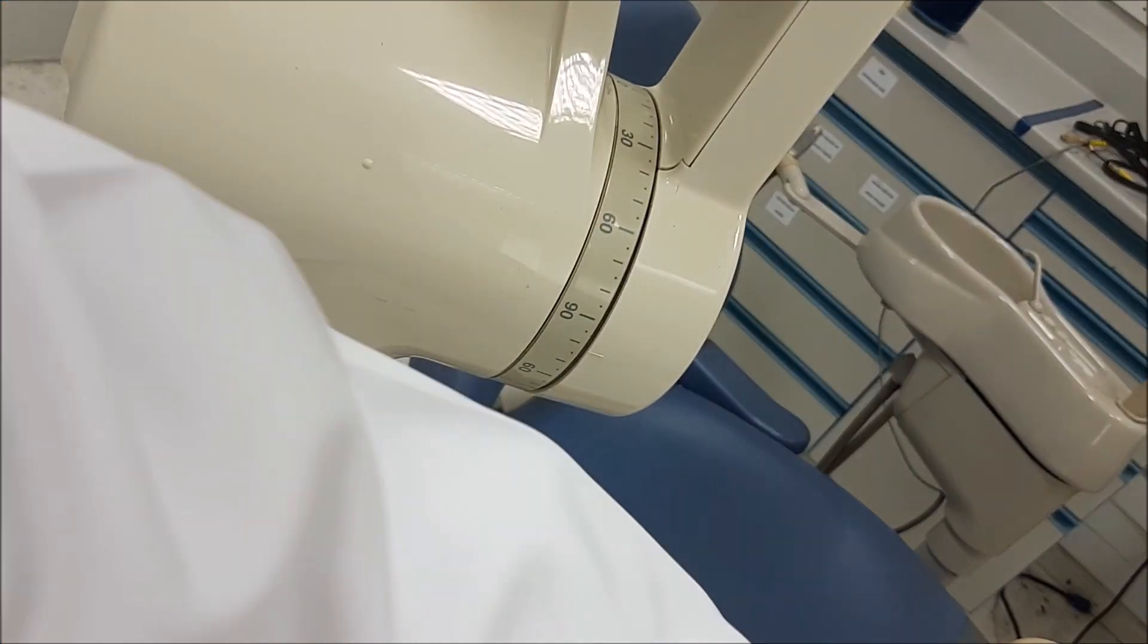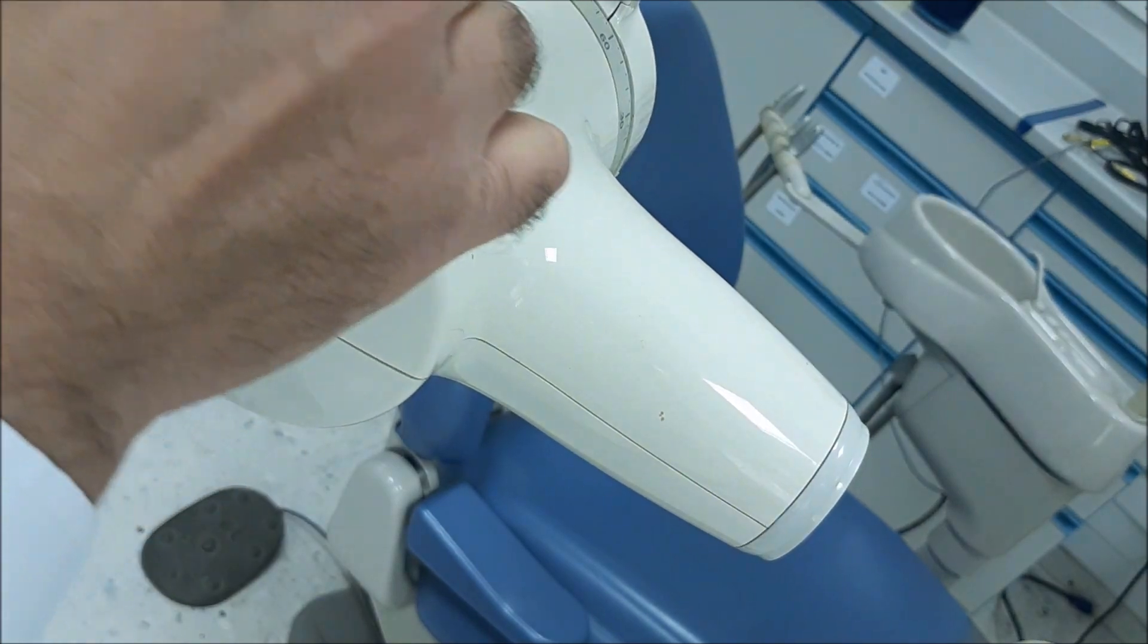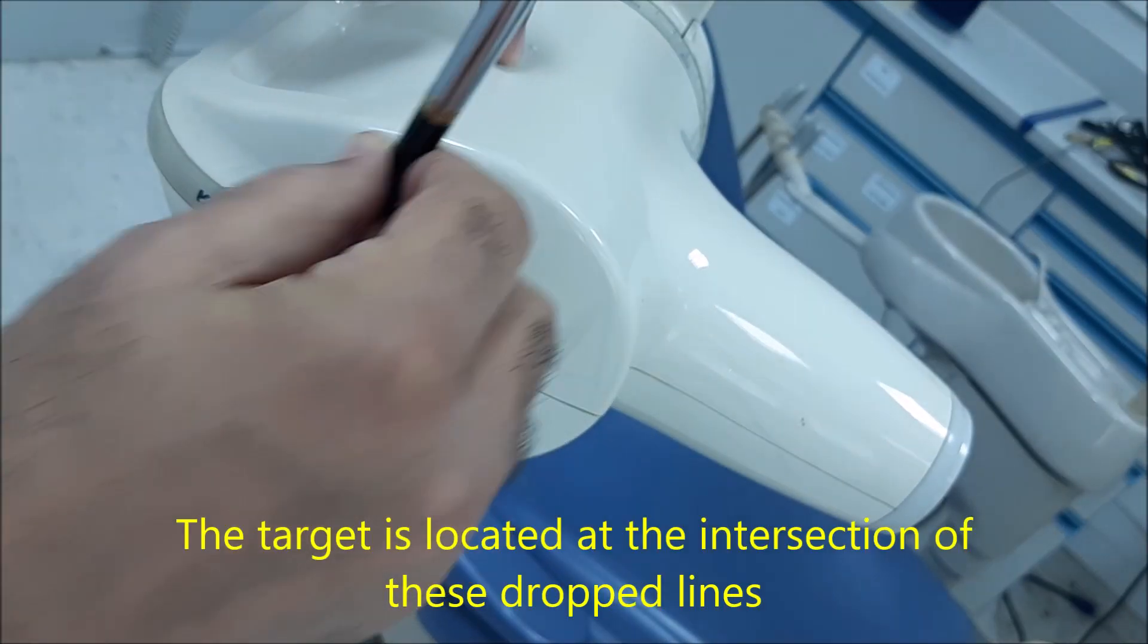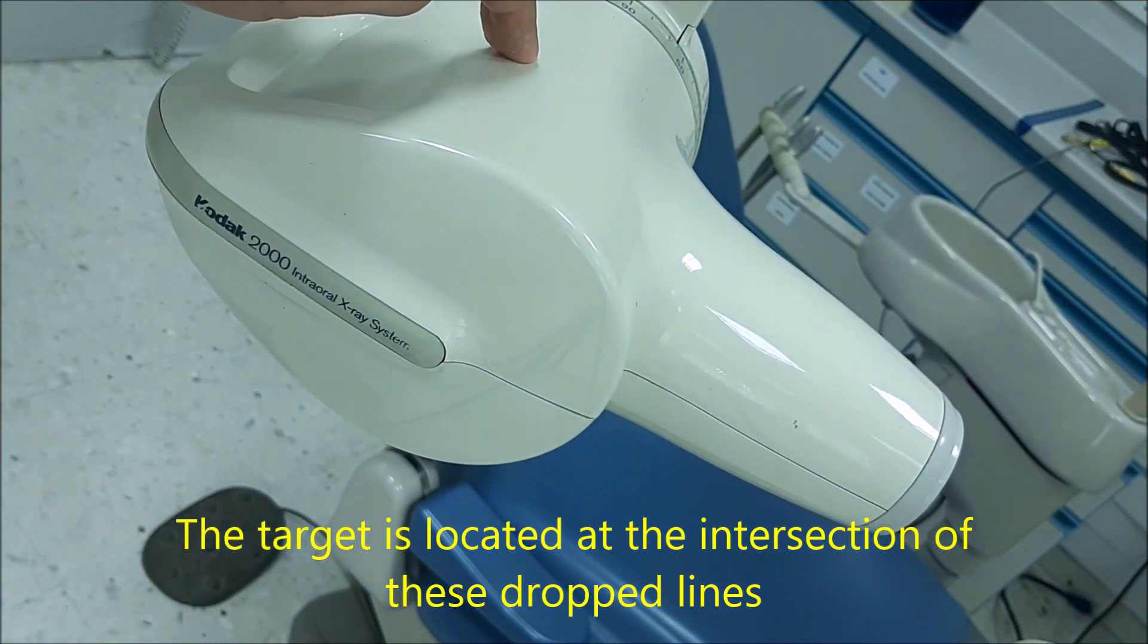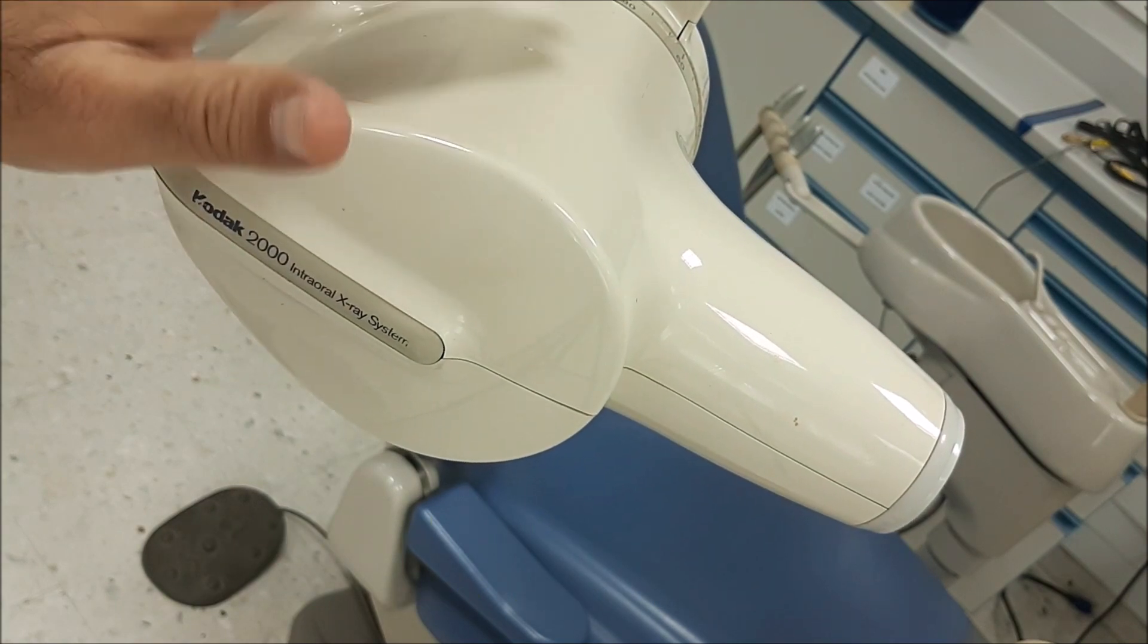So if you drop a line from this point over here, you will find the target and an area in between. In this area, all this head is filled up with oil.